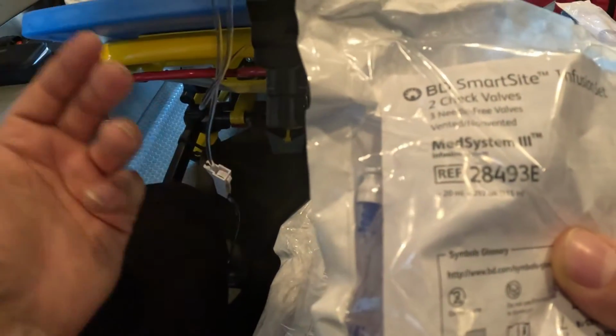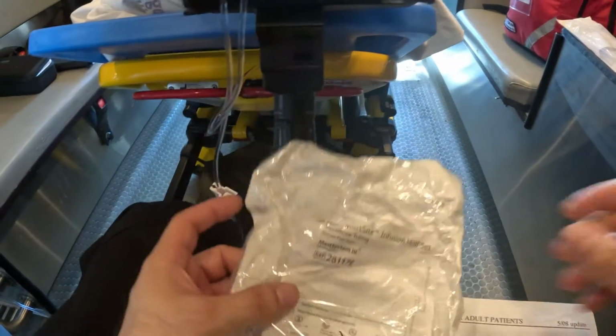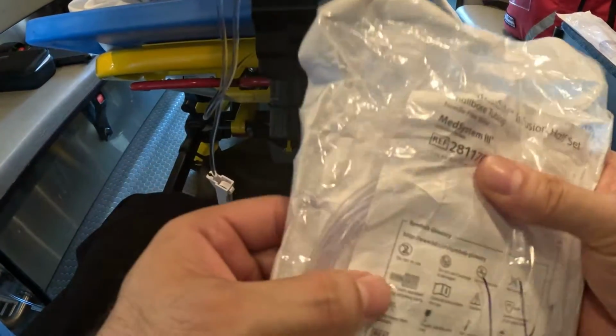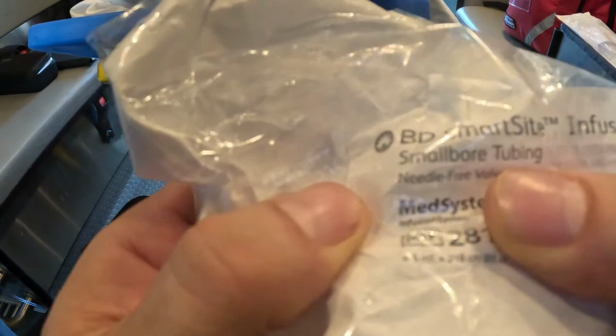We're not going to employ this for the syringe. We employ this if we get a fresh bag. And here, you notice this is a half set. How do I know it's a half set? There's no drip chamber. And the other important factor, for me to flush this entire set, I need 6 mLs of my drug.